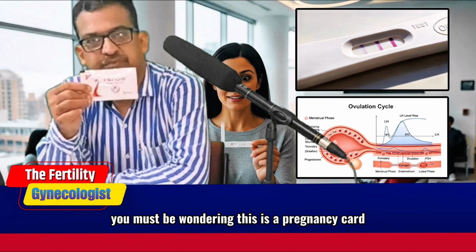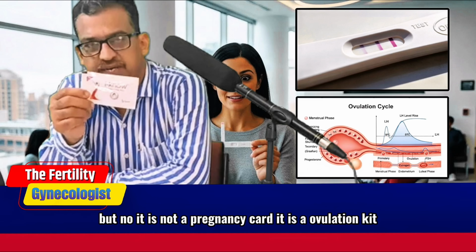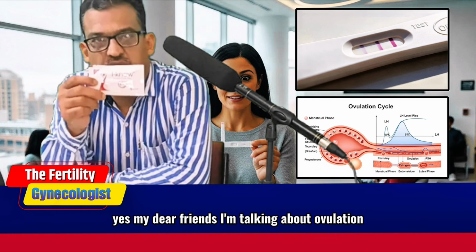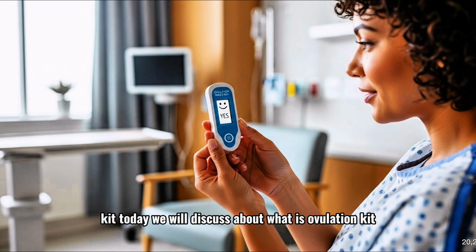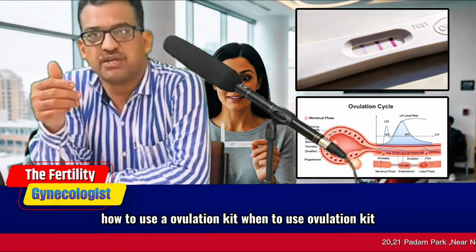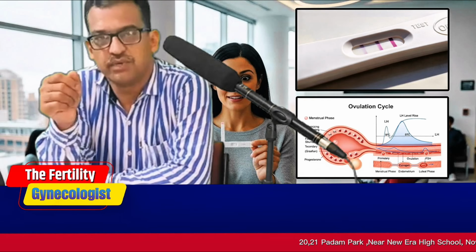You must be wondering, this is a pregnancy card, Prega News as most of the people call it. But no, it is not a pregnancy card, it is an ovulation kit. Yes, my dear friends, I am talking about ovulation kit. Today we will discuss what is an ovulation kit, how to use an ovulation kit, when to use an ovulation kit, how useful it is, and what are the other methods of detecting ovulation.